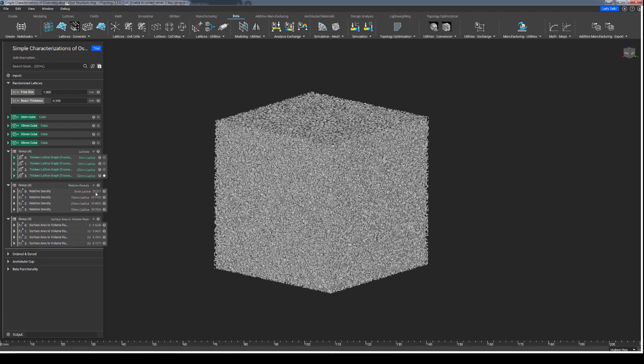As we read through the values across the varying sizes of cubes, we can see that these values do slightly trend in a certain direction, but do so seemingly asymptotically. This means that the values we would expect to see if we were to fill larger and larger cubes is going to be very similar to the values that we already see here, so we can presume that the values on hand are fairly accurate numerical characterizations of this lattice structure, regardless of the size of the volume you're trying to fill.